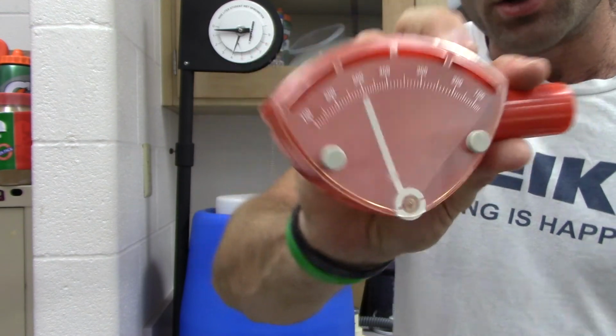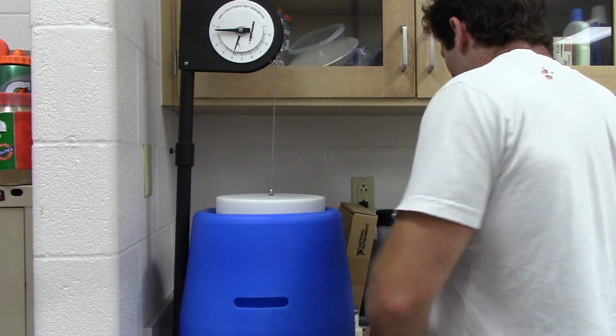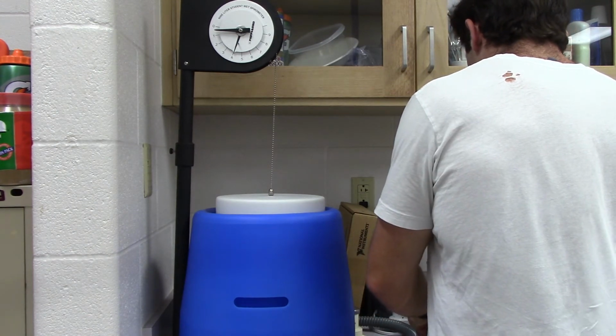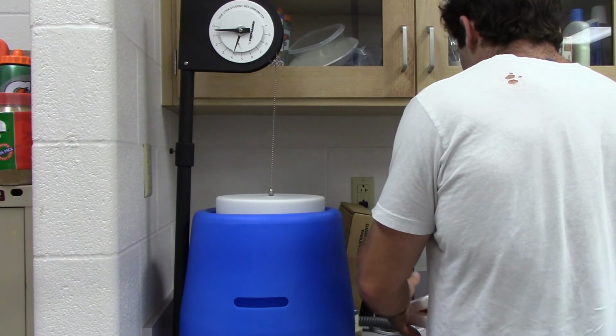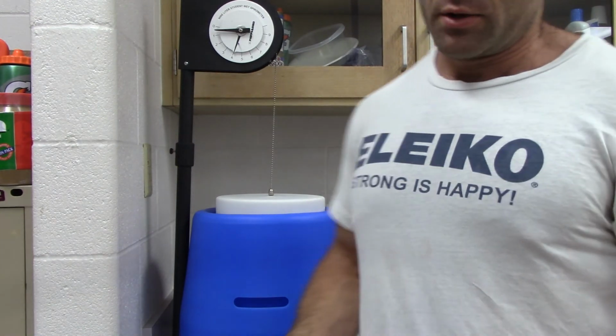Now obviously you want to see a real quick ability to get rid of that air, because that's going to show that you've got no restrictions in your breathing, and that's good for overall health, whereas individuals that are not able to evacuate that much air out of their lungs rapidly are not going to be as healthy.